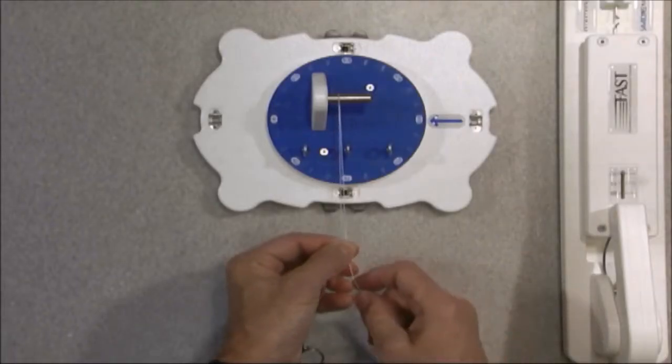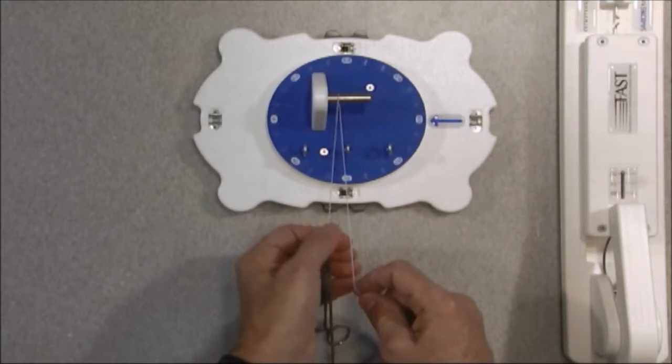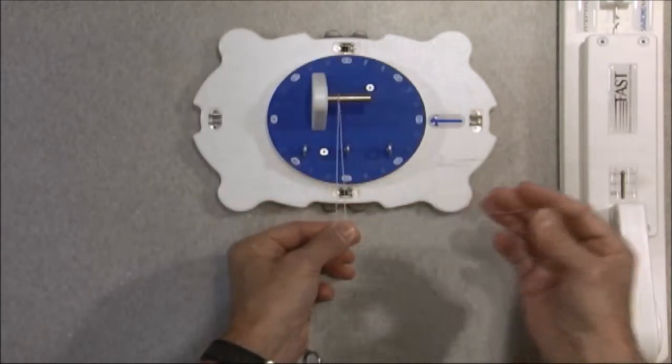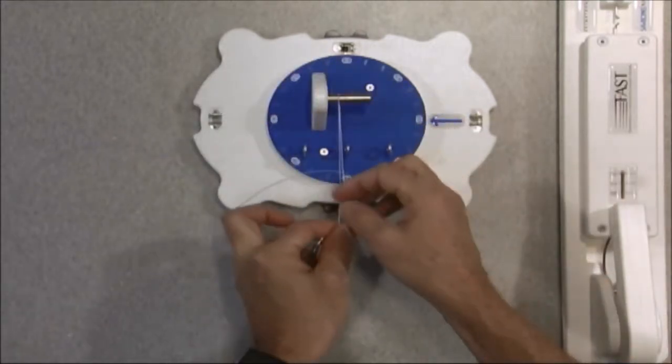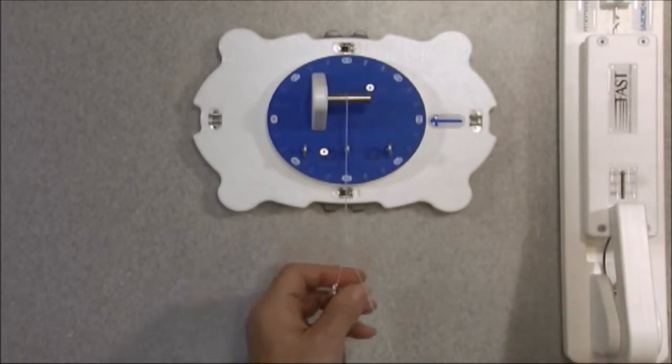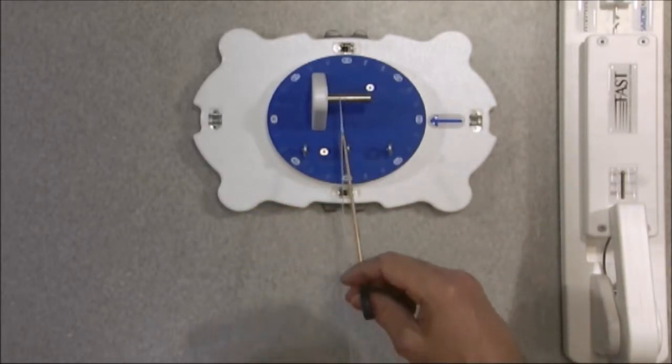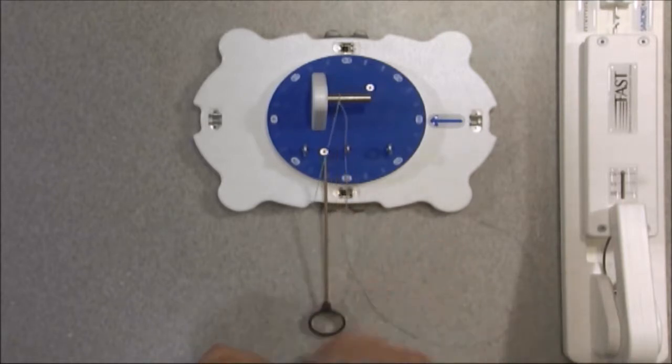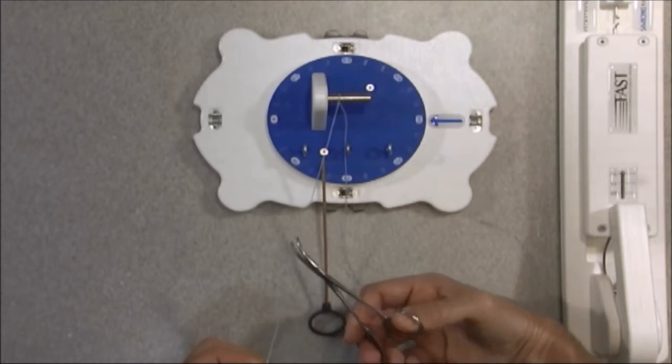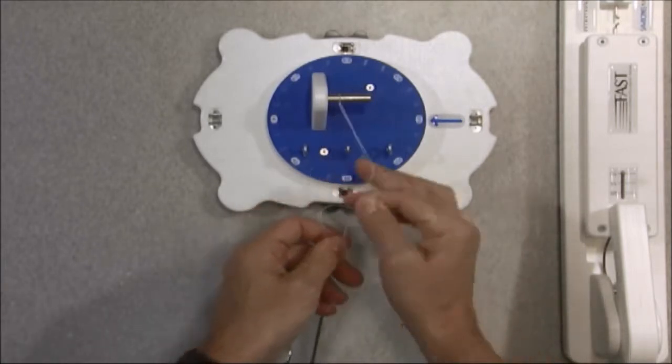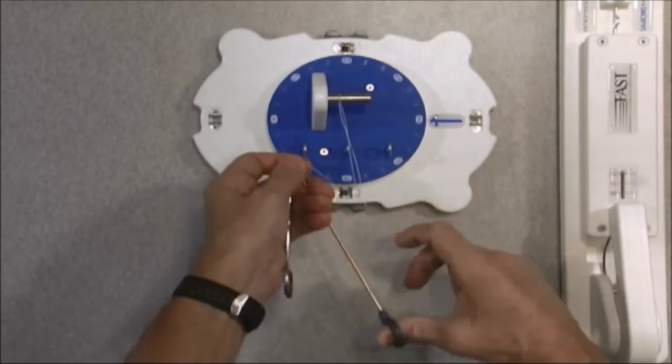Now I'm going to demonstrate how the knot tester works with deliberately creating a knot that isn't very good quality. I'm going to start with the same Tennessee slider. Go over, over, pass through. So my post now is in my left hand. I'm going to come down and gently deliver that over my mandrel. Push that down. I'm going to shorten my post. You notice I did not really flip the knot.